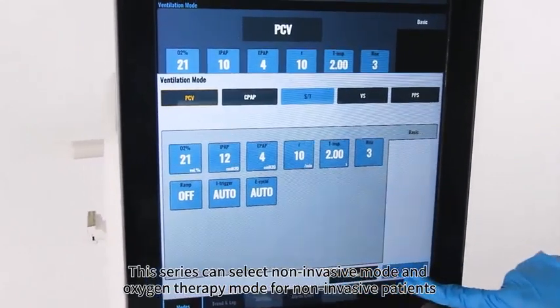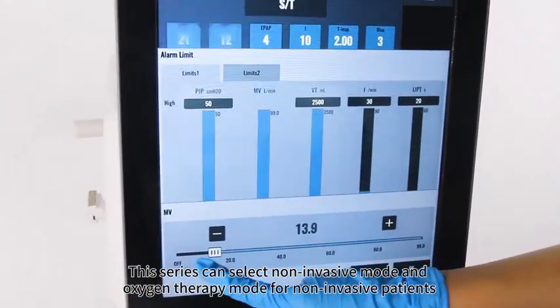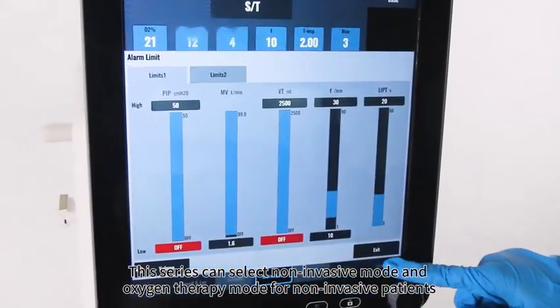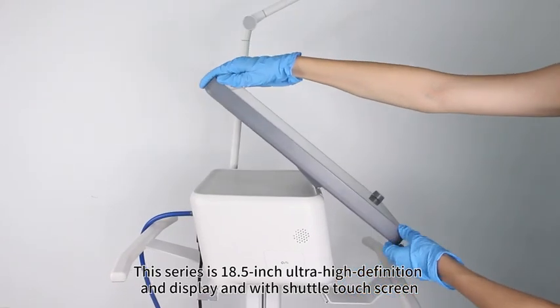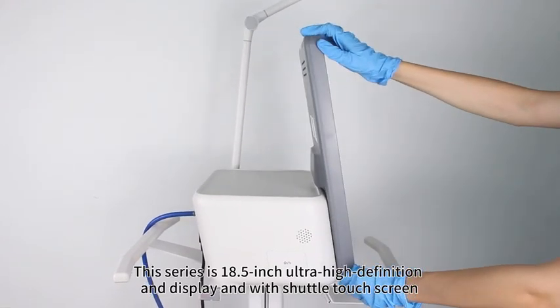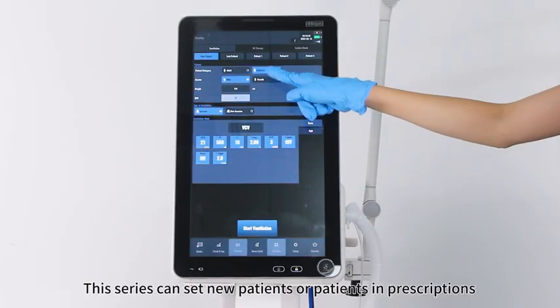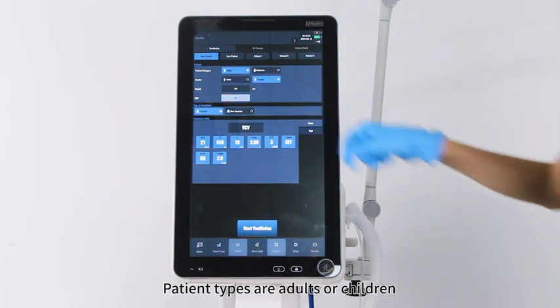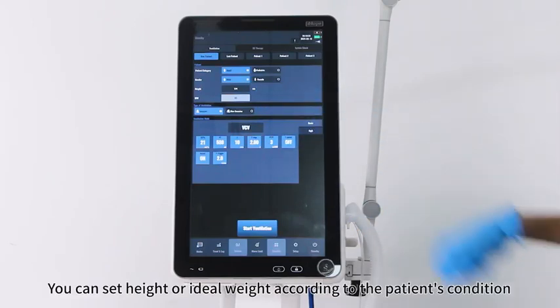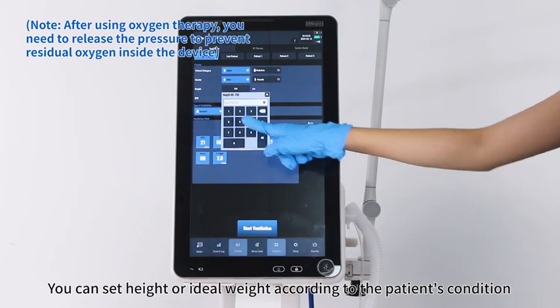This series can select non-invasive mode and oxygen therapy mode for non-invasive patients. This series has an 18.5-inch ultra-high-definition display with a touch screen. Click Ventilation, Non-Invasive Mode. This series can set new patients or patients in prescriptions. Patient types are adults or children. You can set height or ideal weight according to the patient's condition.